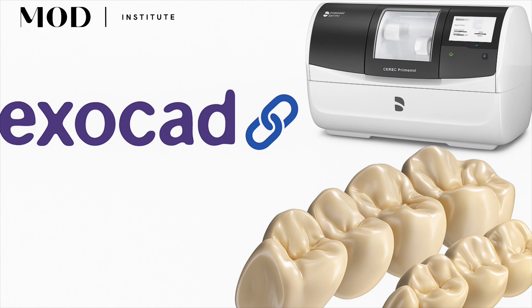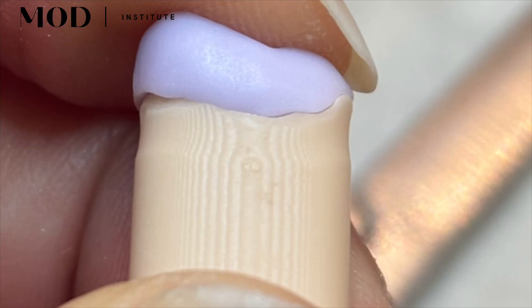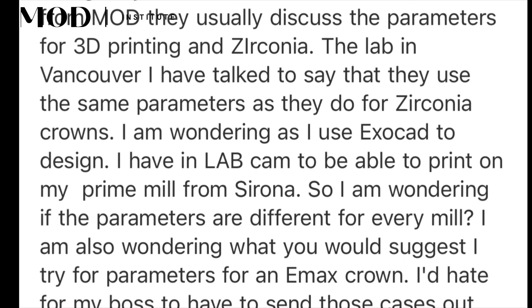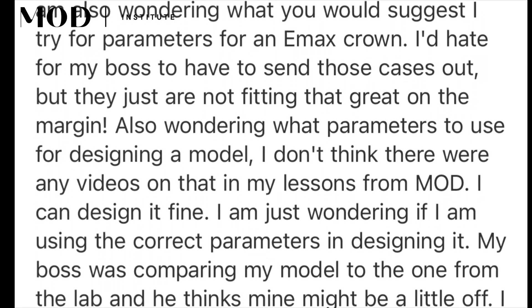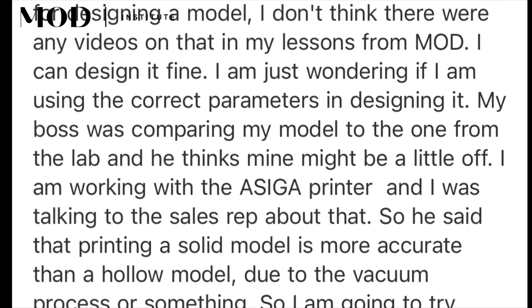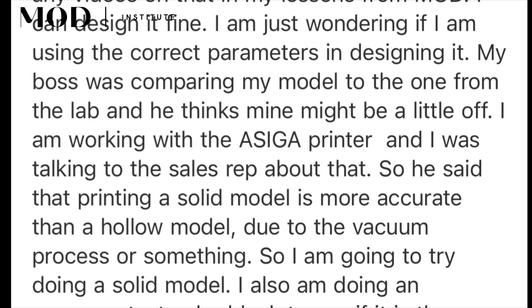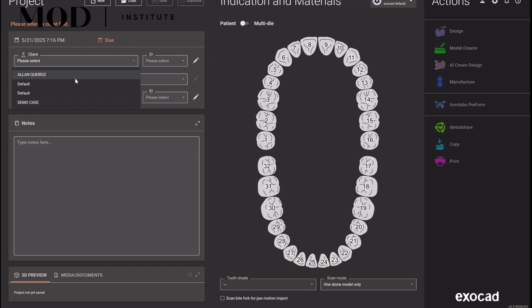We love milling. We have five-axis puck mills — three or four of them at the Mod Institute — but most of you guys are running Cerec with MCXLs or prime mills, trying to figure out how to link Exocad to your mill. You purchased in-lab cam so you got the bridge, but you're getting fits that are complete garbage. You've probably tried to reach out to your local rep or some Cerec gurus and nobody really knows. I'm getting about five messages a day from dental assistants struggling with this, so I've already spent hundreds of hours to figure this out and I'm going to show you what my settings are.